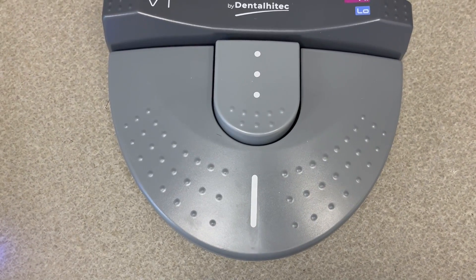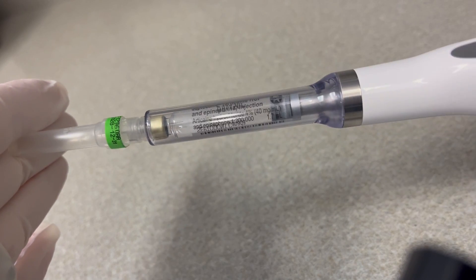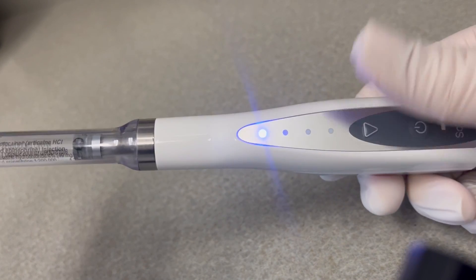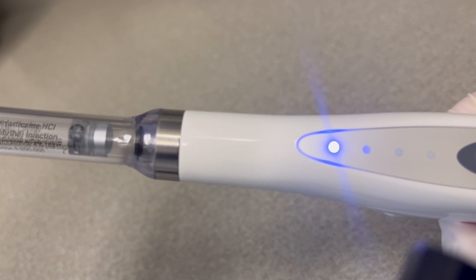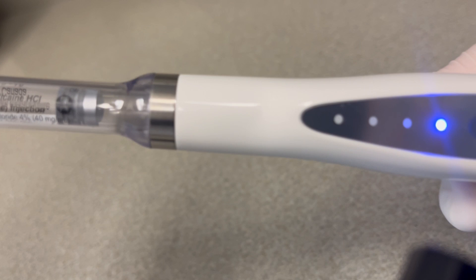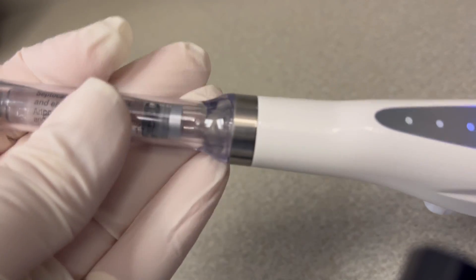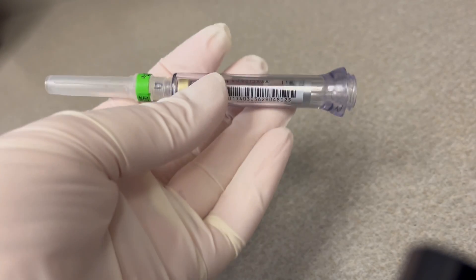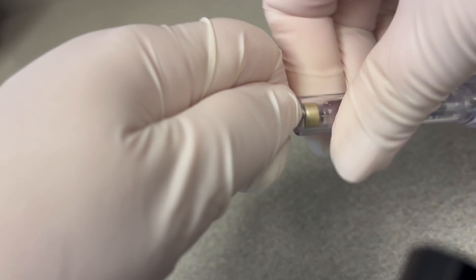I'm going to remove the cartridge of 1-to-200 epi septocaine. With a short press you can hear it, and we can see it retracting all the way back into the base of the handpiece. Now I can safely unscrew this without damaging that portion of the device — it's flush.